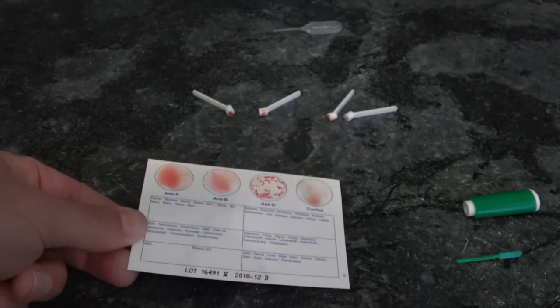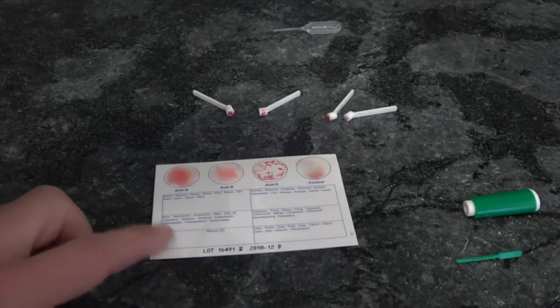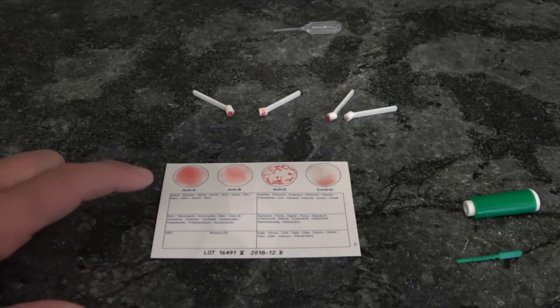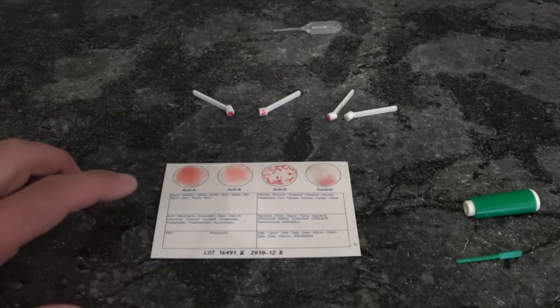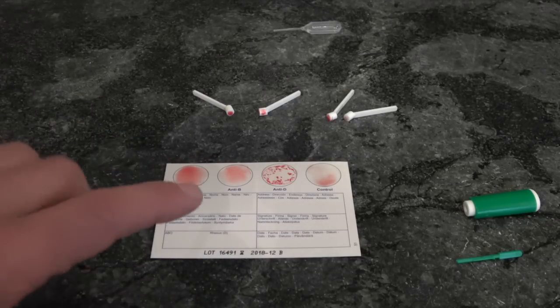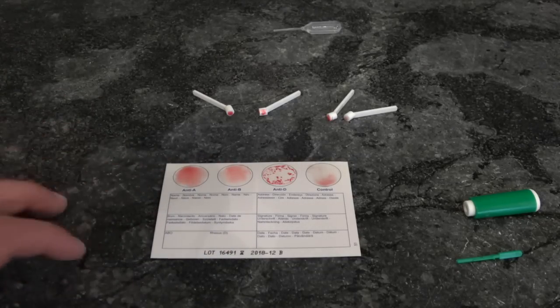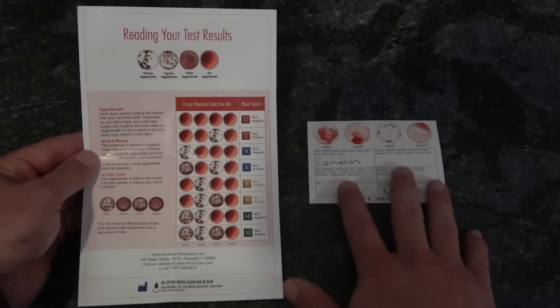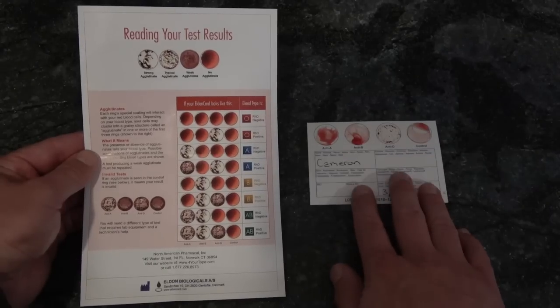And then we're going to center it again and we're going to sit there and let it dry. And you see, if you were doing this and you didn't have to hug a camera, you'd probably get more blood in each, but you actually do not need a lot of blood. That's the kind of result that is going to work just fine. I've gone ahead and put my name and the date on my cards so I don't get this mixed up with other cards.